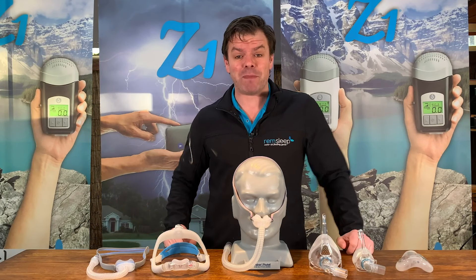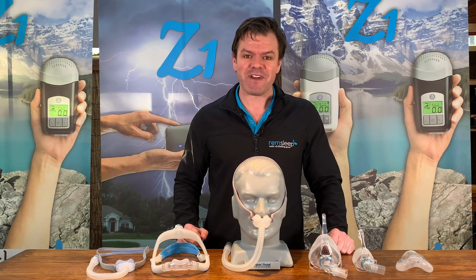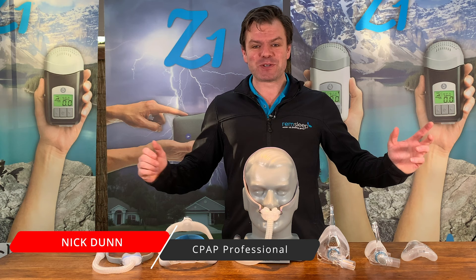When it comes to CPAP masks, there's a lot of different styles, but what are the pros and cons of each style and which mask is most suitable for you? Stick around and I'll walk you through it. G'day guys, Nick here from CPAP Reviews. Great to be with you as always. Thanks for tuning in wherever you are in the world.